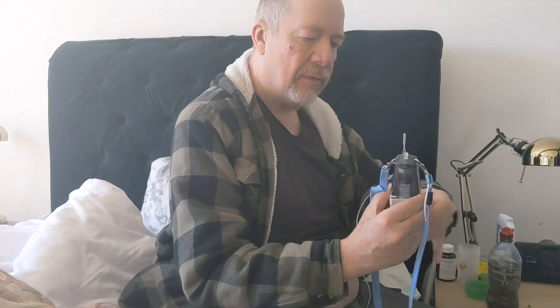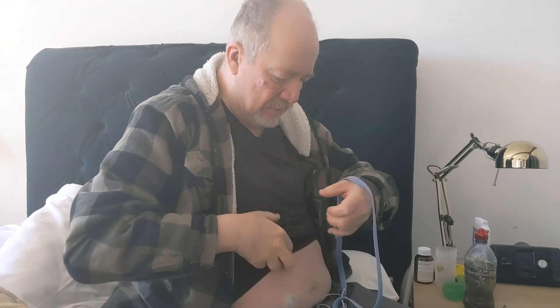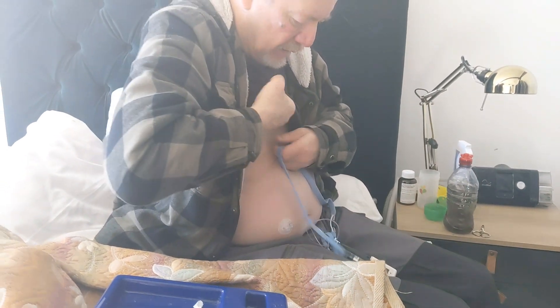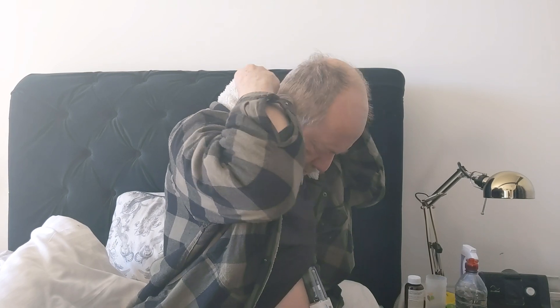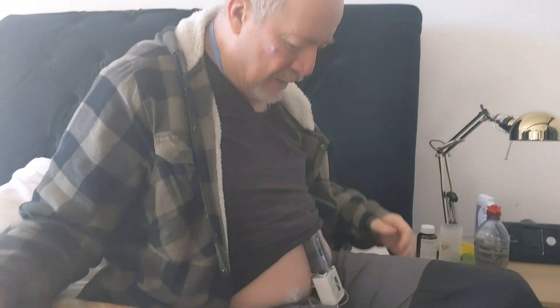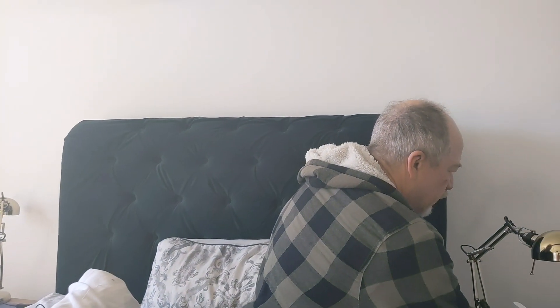I can take this part and put it around my neck. The easy way to do this is to take it up behind my shirt and put it over my head, then lower the shirt. My job is now done — I put this back and I'm ready to carry on with my day. I hope you enjoyed that. Thank you — this was the changing of the apomorphine cannula.